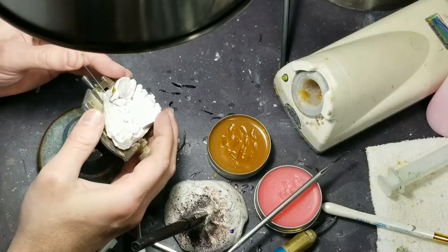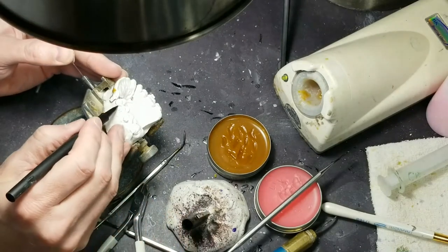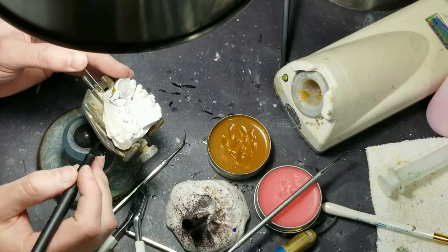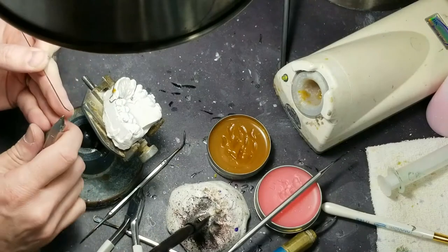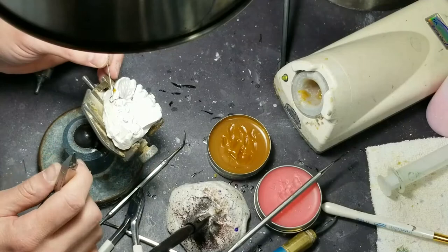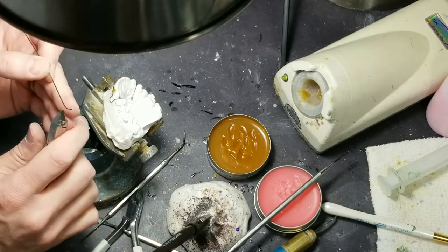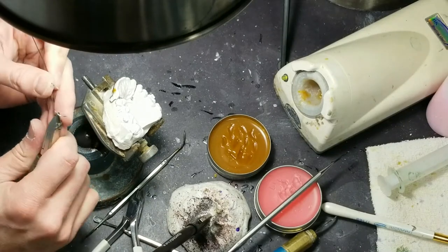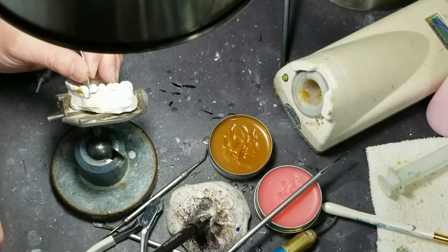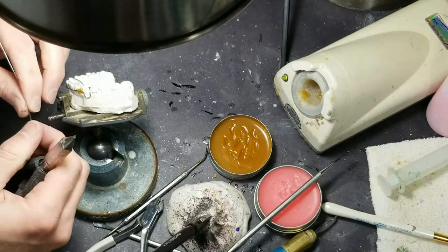So I'm going to continue my C-clasp here. I'm just running this wire along the gingiva — remember I've cleaned that gingiva a little bit so that it is smooth and I can lay the wire on. Yes, Sarah, the washer is going again in the background. Thank you for that.